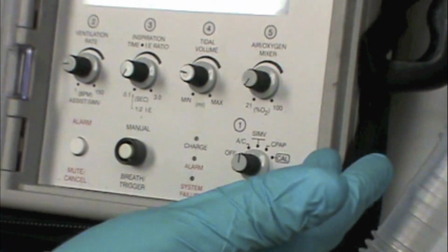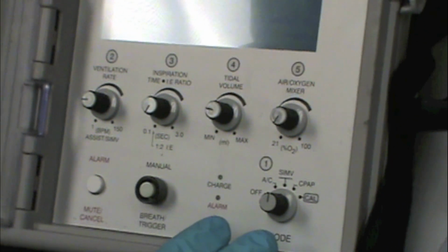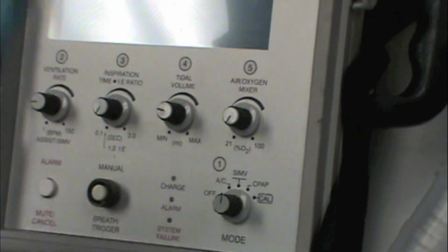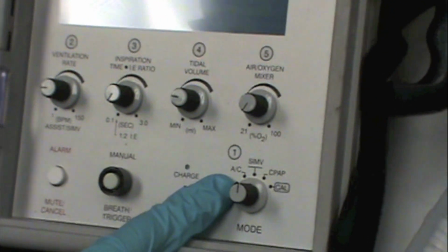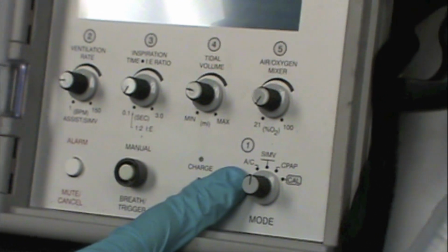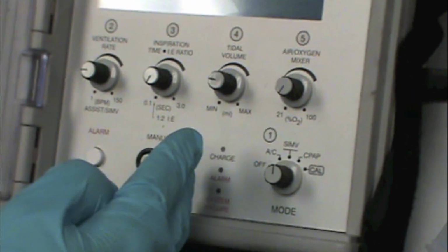So this is a more comfortable mode for a patient that is more awake and alert and allows them to regulate their carbon dioxide level on their own accord without us blowing off all their CO2. If we put the same patient in the AC mode and they were not well sedated and they triggered 20 breaths, then they're going to blow off all their carbon dioxide because they're going to get 500 cc tidal volumes every time they breathe. In SIMV mode, they're going to get mandatory breaths and non-mandatory breaths, and the non-mandatory breath will be at their own leisure, their own volume.